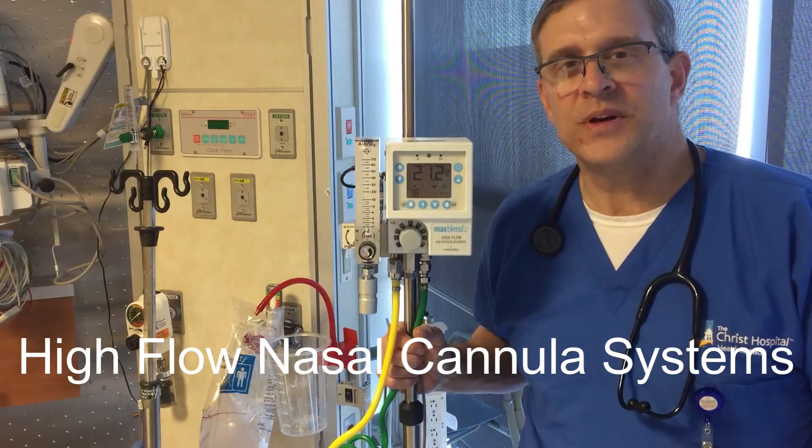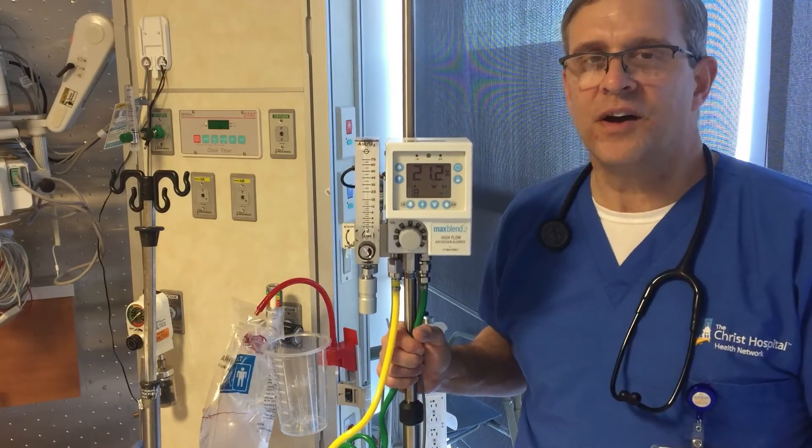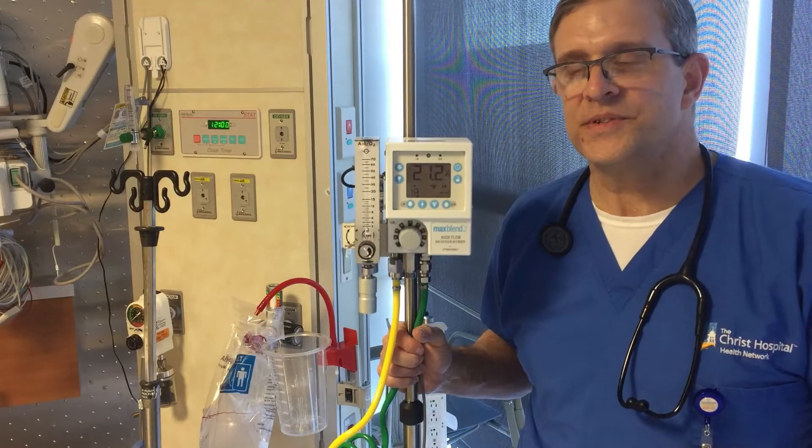Hi, my name is Mike. I'm a respiratory therapist and today we're going to talk about high flow oxygen delivery systems.